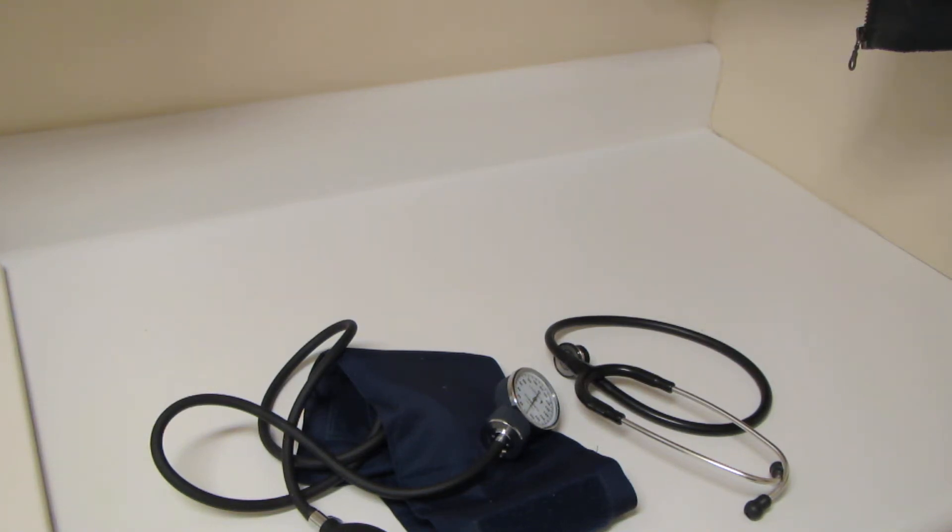Hey everybody, welcome back to AP2 lab. Today we're going to look at what you need to check a patient's blood pressure using an instrument called a sphygmomanometer. Yeah, say that three times fast, right?